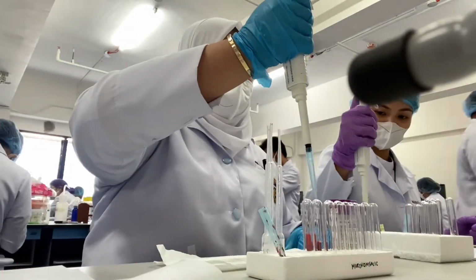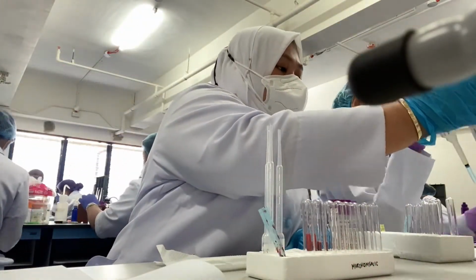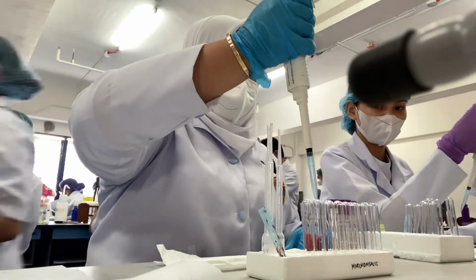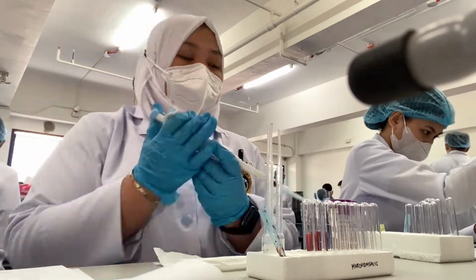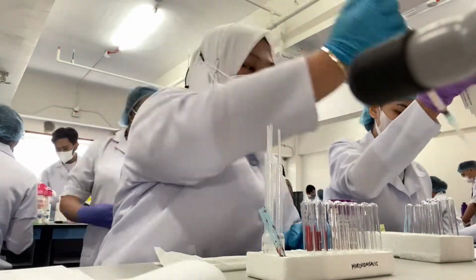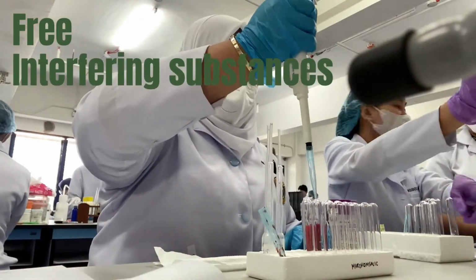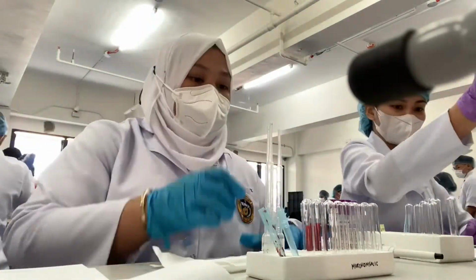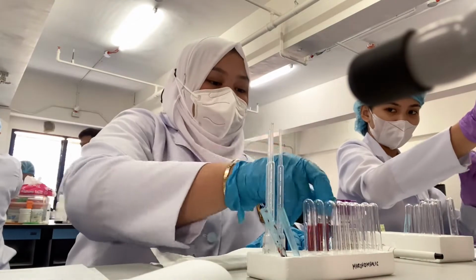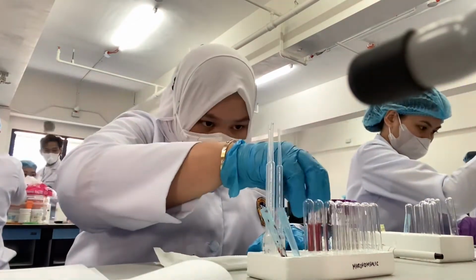Also, in preparation of red cell suspension, wash completely the given whole blood sample several times with NSS to remove traces of plasma. And lastly, the suspension should be free from any interfering substances. Mix it well, and now the red cell suspension is ready.